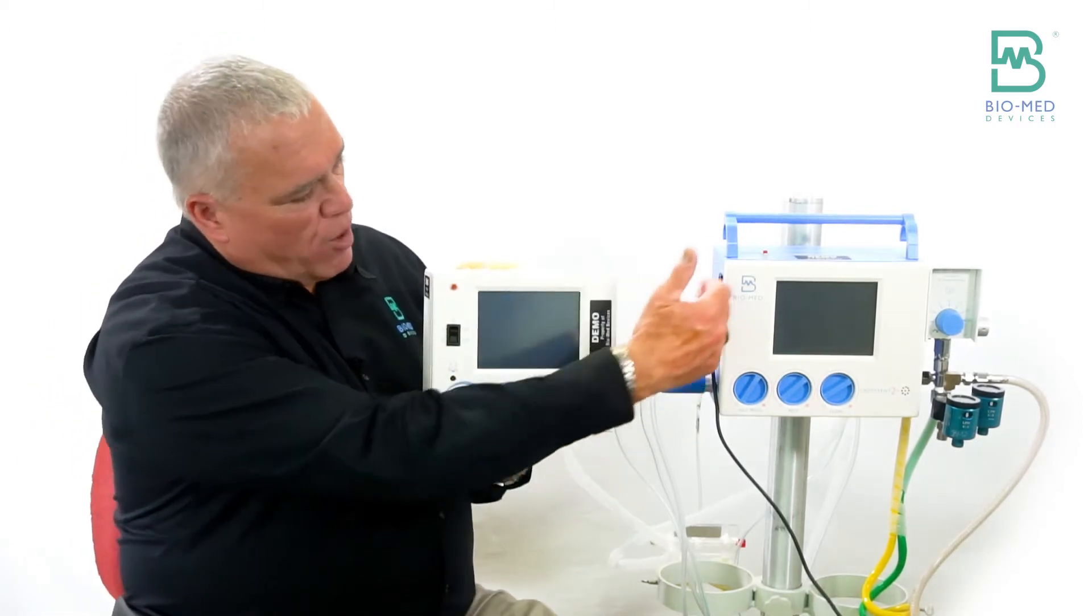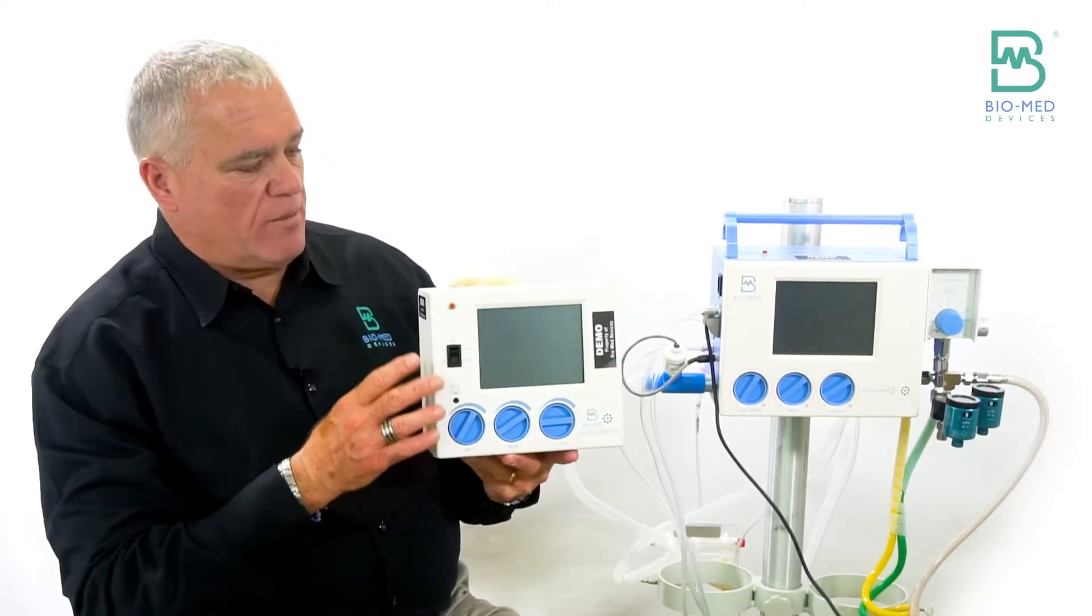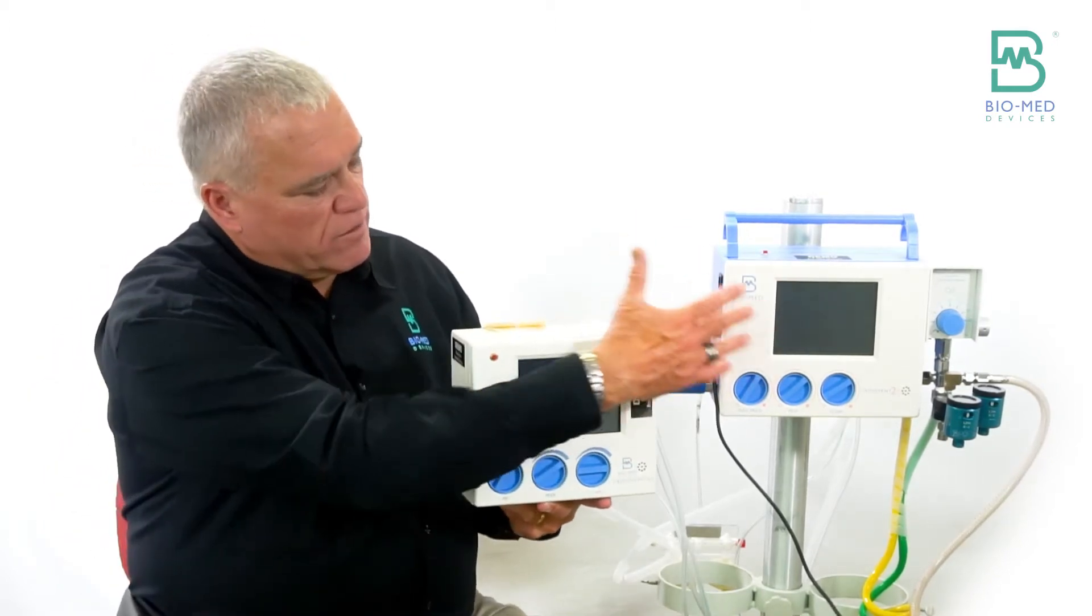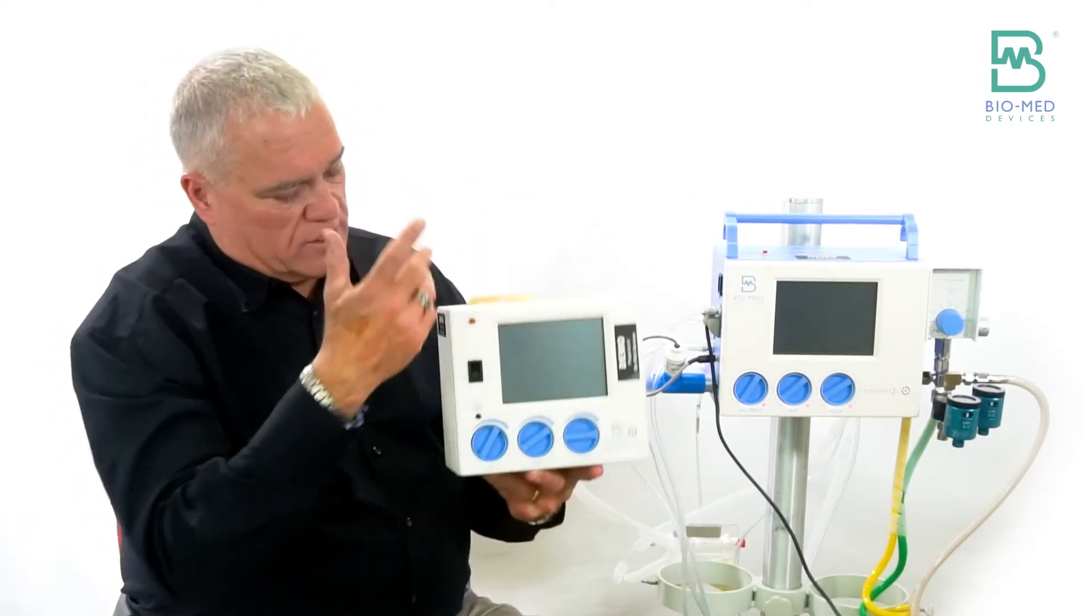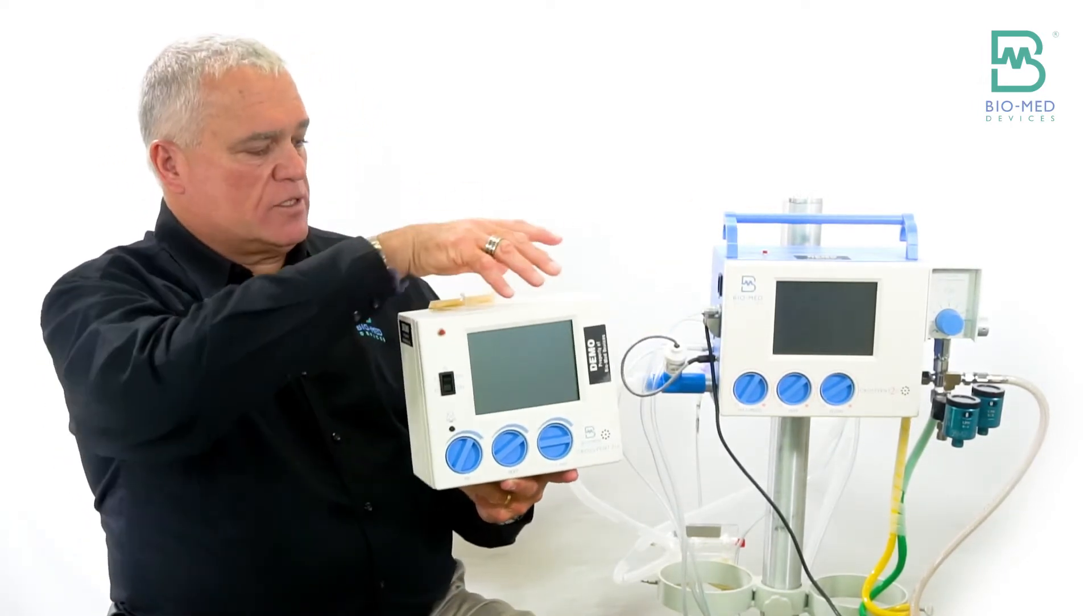But the software in both of these units is exactly the same. So when I get to the function of the software on the standalone, it works the same as this one.